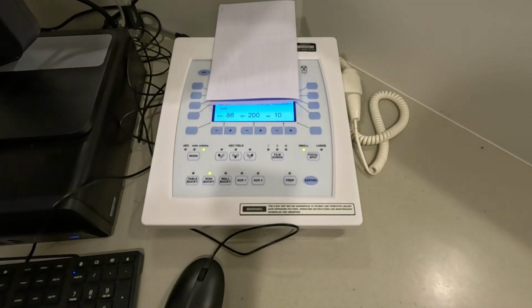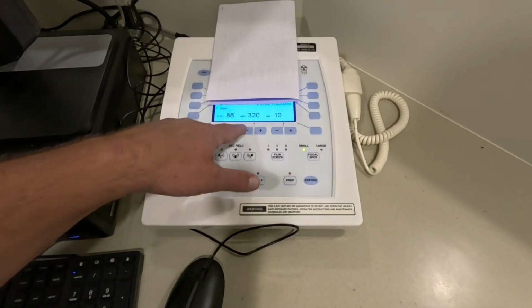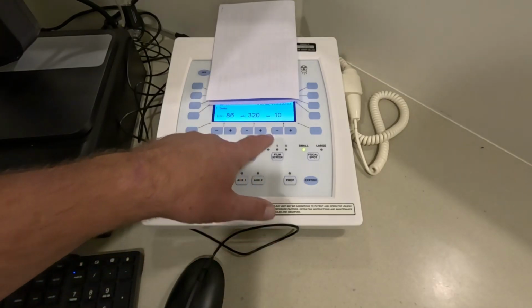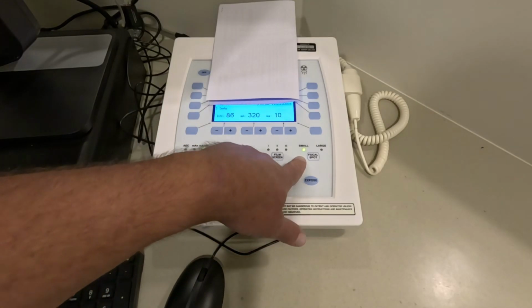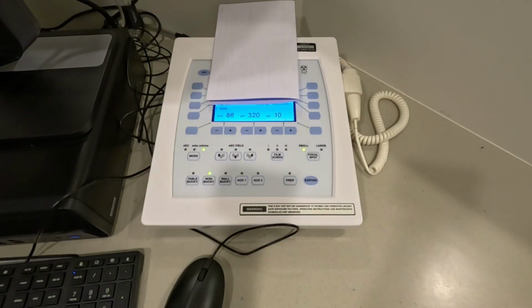So what you might have picked up on before is that as I increased my mA to a point, it got to what that says, tube mA limit. The reason we're at tube limit is because we're on small focal spot. The focal spot is the filament from which all of the electrons emanate before we send them across the X-ray tube. And a small filament is just that. It's kind of like in a light bulb. It's a very small filament, and it can only hold so many electrons, and adding any more electrons to that would cause potential tube damage. Just like a light bulb, the X-ray tube can burn out.